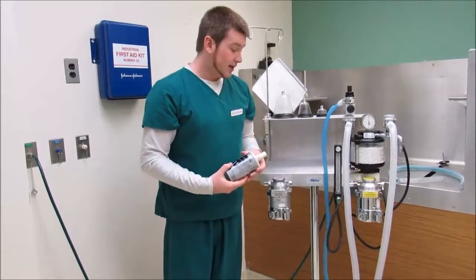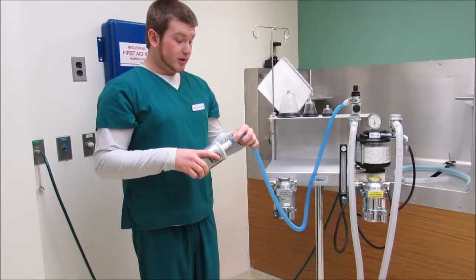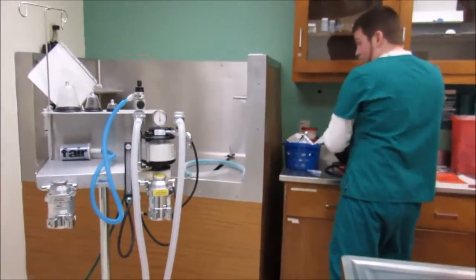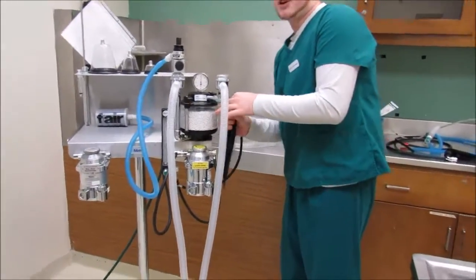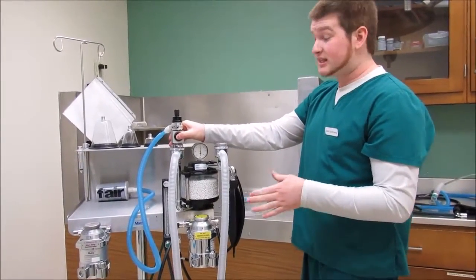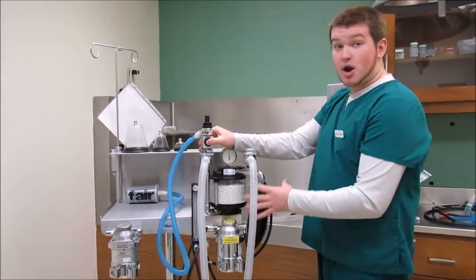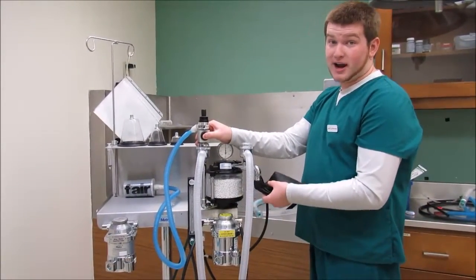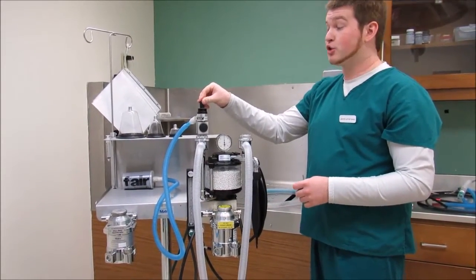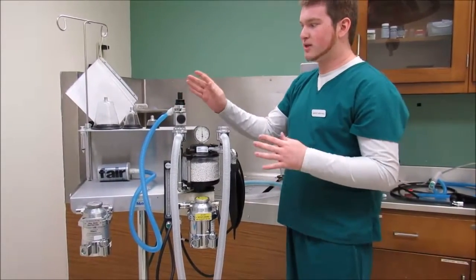And another thing to know is how to properly estimate your rebreathing bag. So your rebreathing bag over here is going to go right here. And whenever you're using your rebreathing bag, you need to make sure you either hold this button down. This stops the rest of the system from having oxygen come through. And you can push this button down and let it fill with air, and then you can give them a breath. Or you can close the pop-off valve, but your system should always have the pop-off valve on open when you're using it generally. Always make sure it's on open.